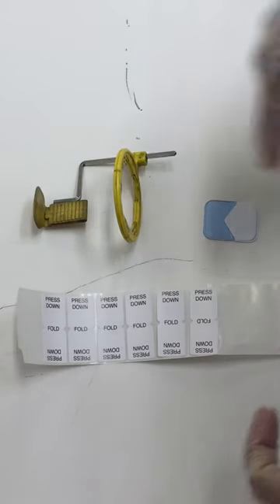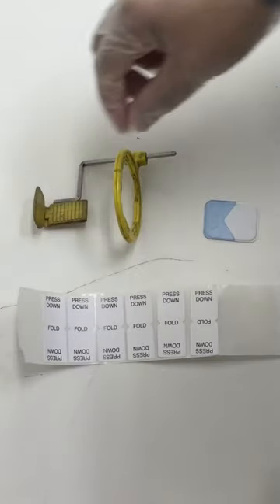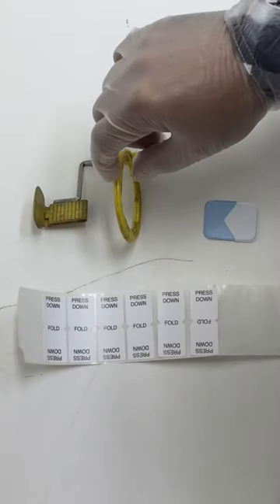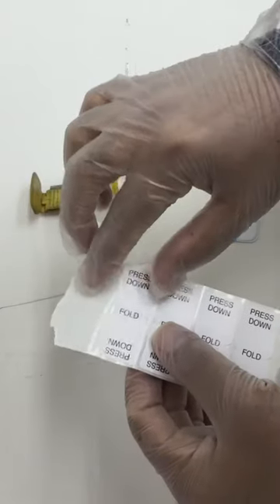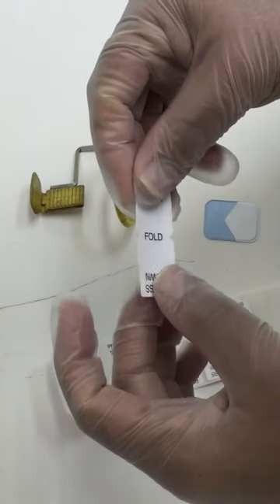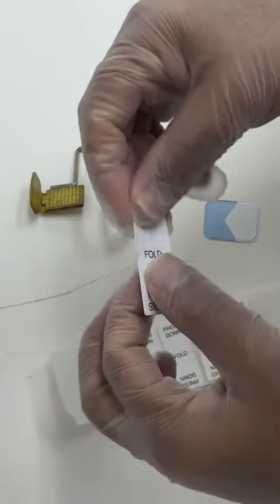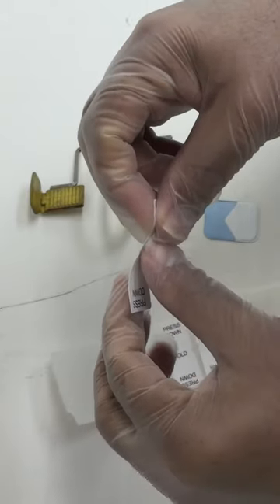Hello guys, I want to show you how to use the adhesive tab in the exam. Usually in the exam you will use the adhesive tab for bite wings if you don't have the x-ray bite wings holder, the red one.